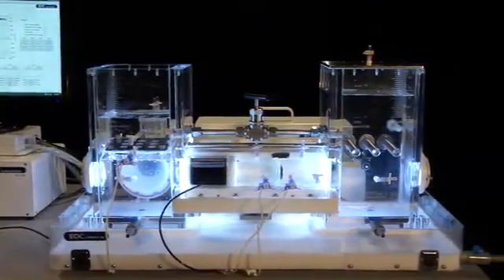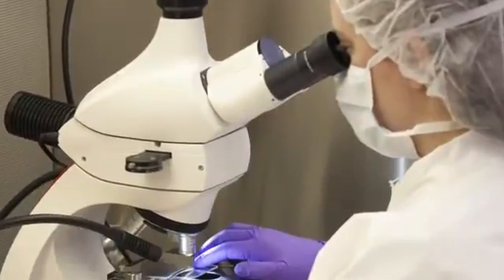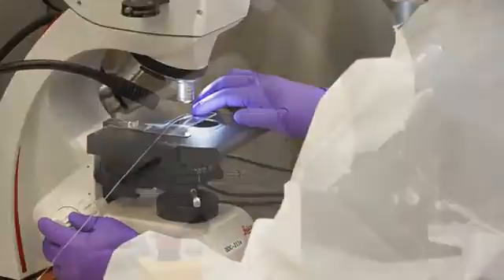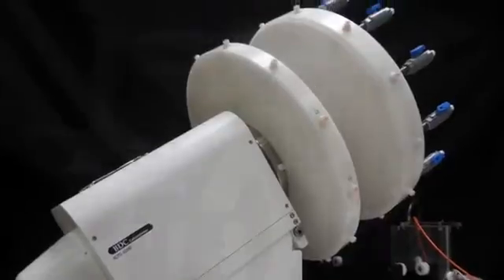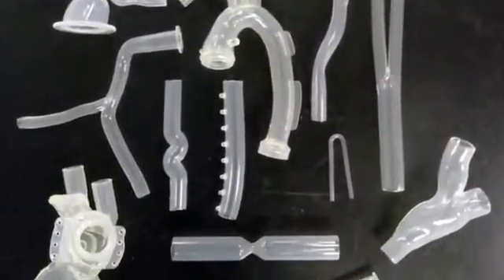Over the past 10 years, BDC has expanded its offerings beyond device testing services to also include test equipment, silicone vessels, silicone mock anatomies, and simulation platforms.